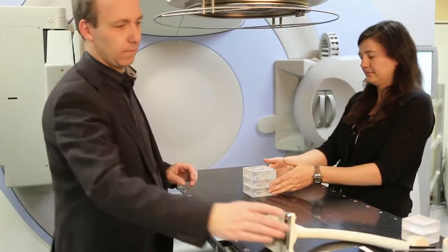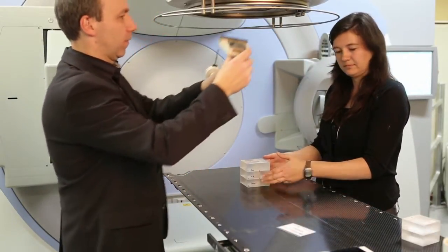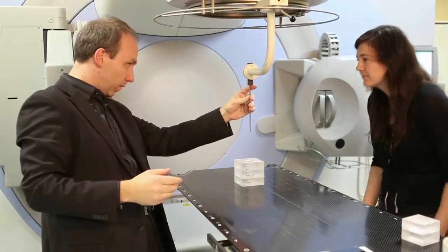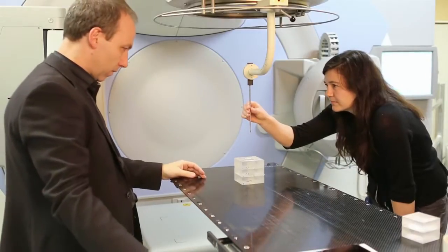The rings are used for all energies. Each plug is for a specific energy as marked. Align the phantom roughly with the center of the beam and adjust the SSD to 100cm to the top of the phantom.